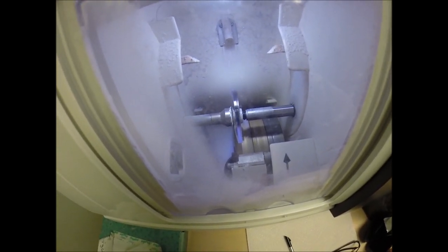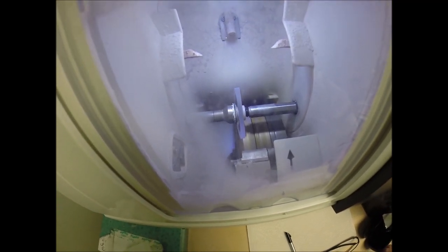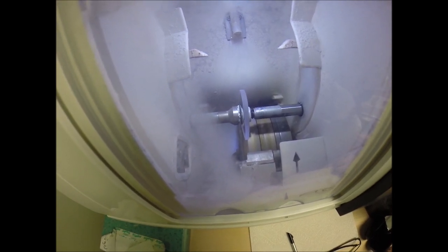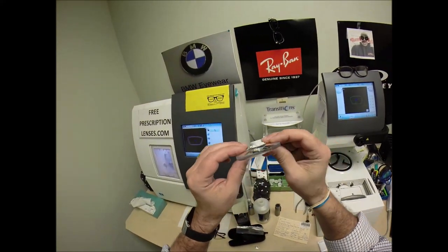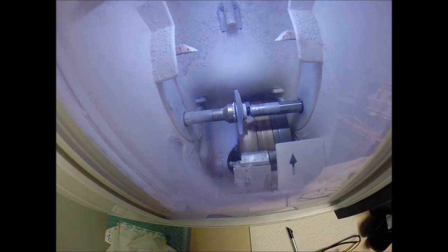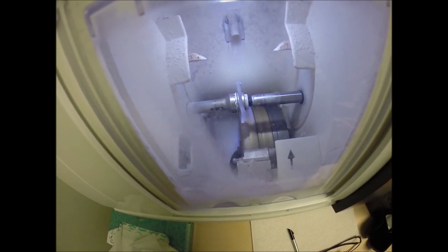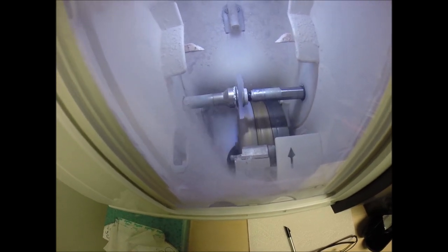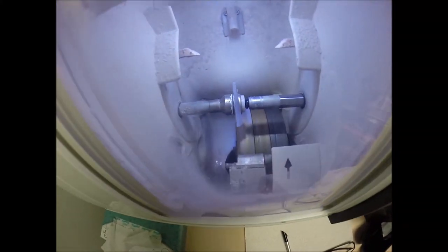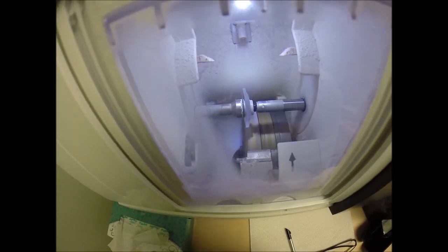Polycarbonate lenses cut dry. For plastic, high-index plastic, and Trivex lenses, water sprays onto the lens for the duration of the cutting cycle. Water will spray onto the lens for the last 20 seconds just to wash away any optical debris. Your lenses are made out of polycarbonate, which is 40% thinner and lighter than regular plastic. They're virtually unbreakable — these are high-impact ballistics-grade lenses, the same materials our soldiers wear overseas to protect their eyes from shrapnel. It's also what OSHA requires factory workers to wear. It has 100% UVA and UVB protection built in — your eyes are eight times more sensitive than your skin, so you have permanent sunscreen for your eyes.